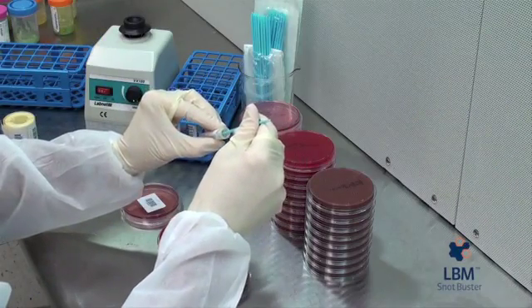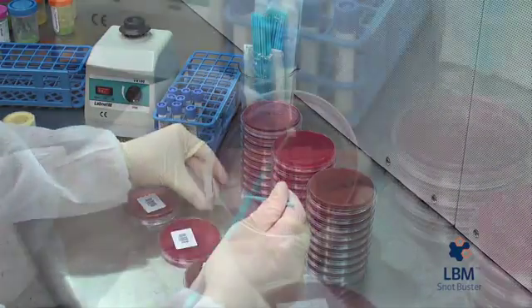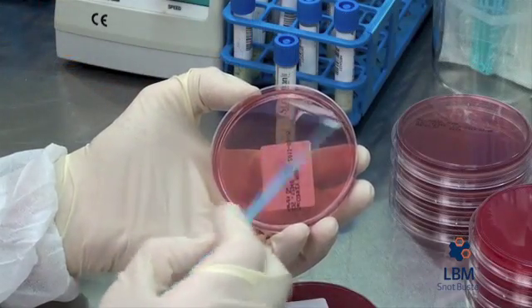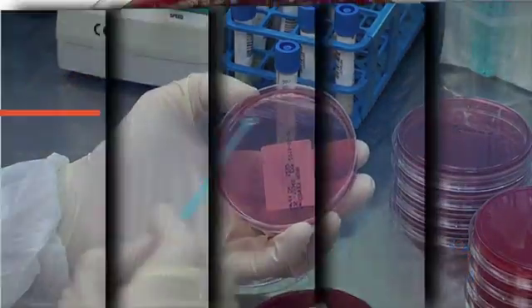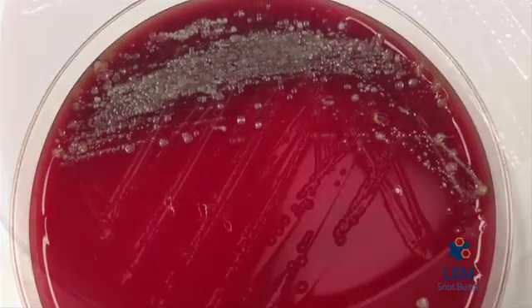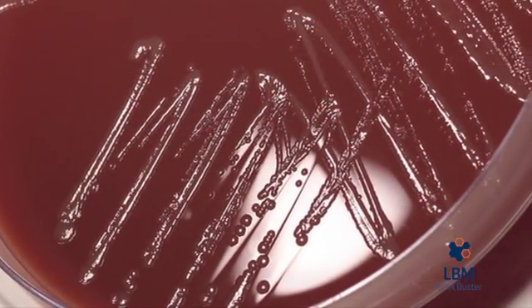Snot Buster creates a homogeneous suspension of sputum for easier, more consistent, and reproducible specimen planting and streaking. It does not affect the morphology or growth of pathogens.